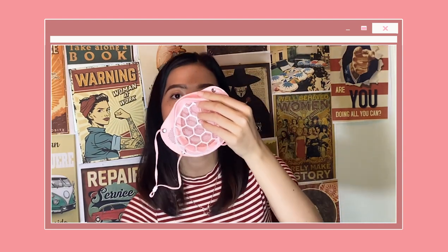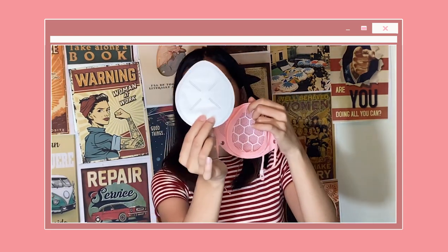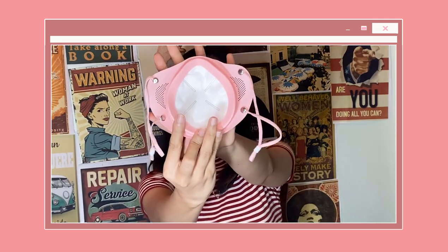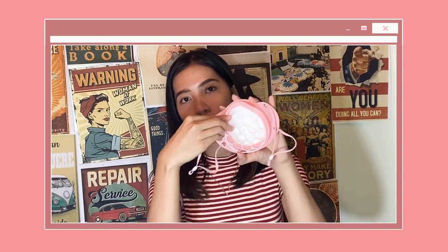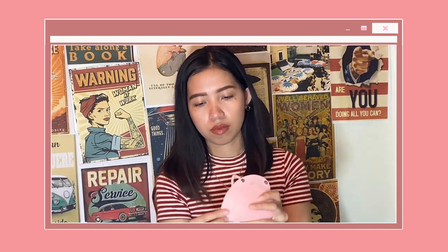These two gaskets are used as the skeleton of the silicone mask. The first one you will have to put inside as such. Then get one KN95 free filter and fit it perfectly into the gasket. Afterwards, it will look like this. The two gaskets are used as a protection between the filter and the mask, so put the second gasket to secure the filter.